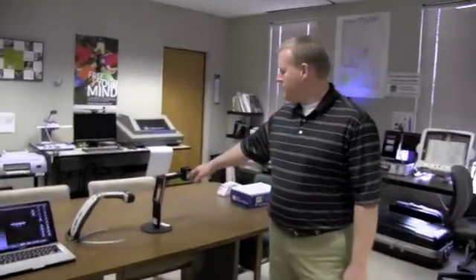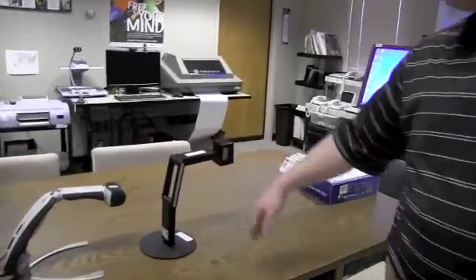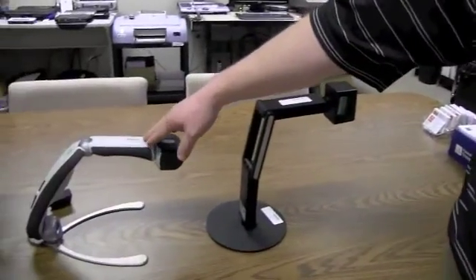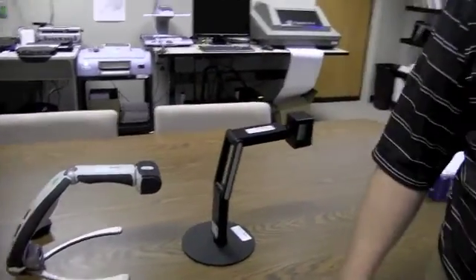We have used some traditional CCTV devices. This one over here is called the IDEX CCTV. This one is called the Transformer CCTV. And these basically connect to the user's laptop and allow you to see not only printed materials, but also allow you to do some distance viewing too, whether that's in the classroom or in a meeting of some sort, to be able to see things that are maybe up on the wall or at a distance.